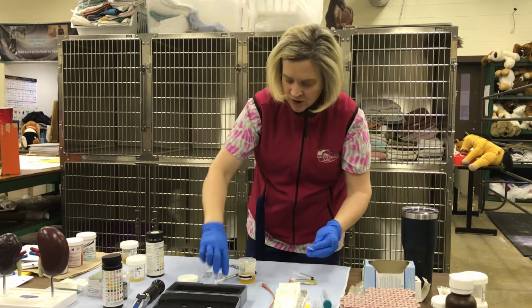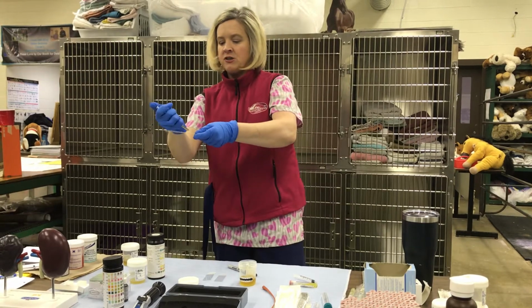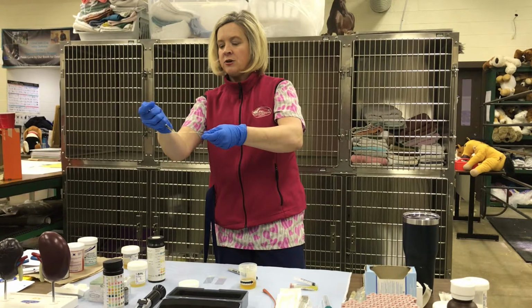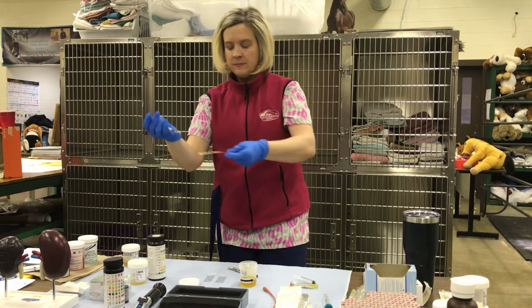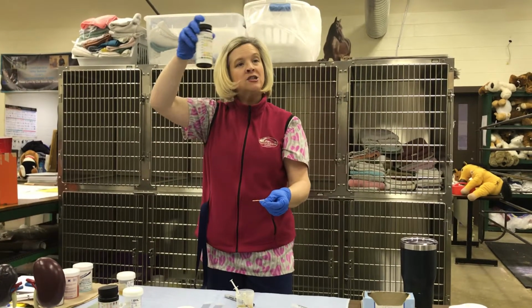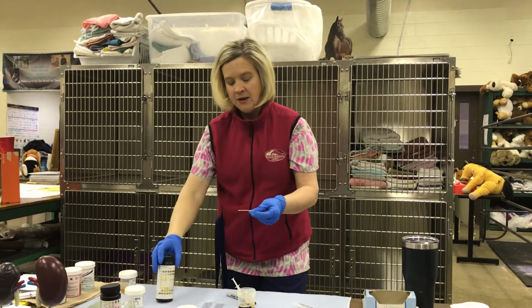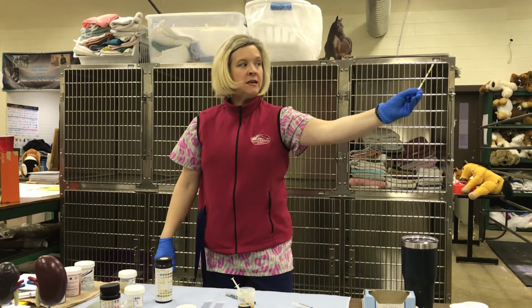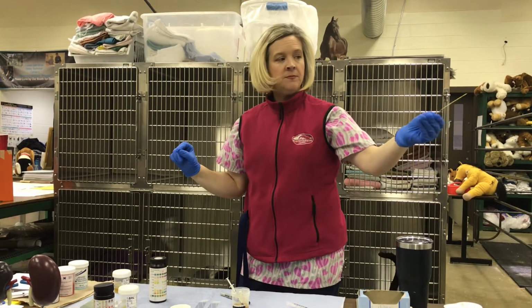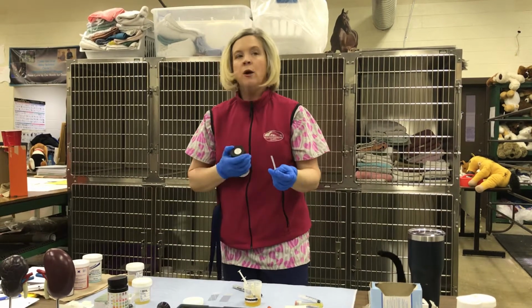Some people will take extra urine, use a syringe, and go across the little squares, placing the urine on top. When you see your bottle, it will have the time on the side. You're supposed to wait about a minute, or 60 seconds. Remember, when running a dipstick, we're looking for a color change. So we're going to wait about a minute, and then go to our bottle.